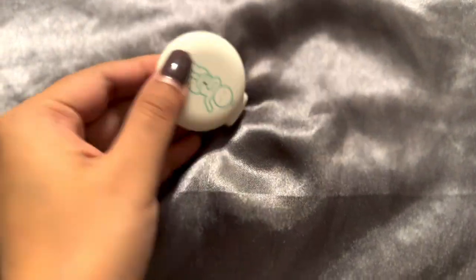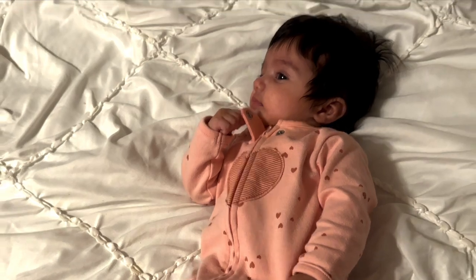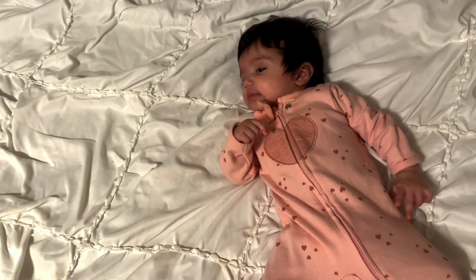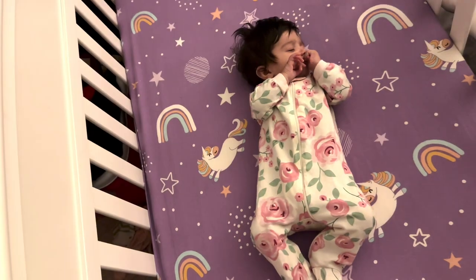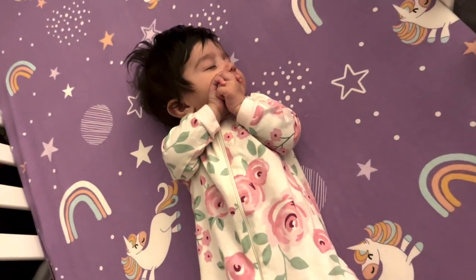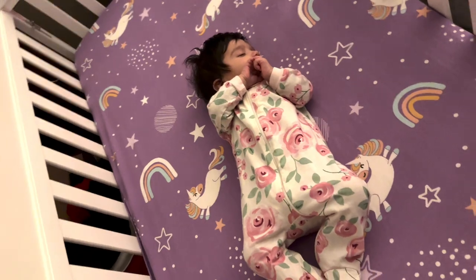The best thing is this device is lightweight and the baby feels comfortable wearing it day and night, although we just take it out during tummy time. We are also seeing early signs of rolling over in Azara, so we're very happy we discovered this monitor so we can detect her body movement and get rollover and sleeping position alarms. The monitor can alert parents in real time about the baby's abdominal breathing movement, rollover, and temperature. For tracking breathing, it works by monitoring the rise and fall of abdominal breathing movement.